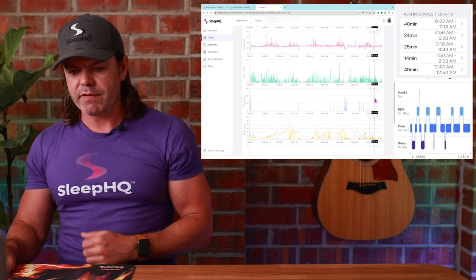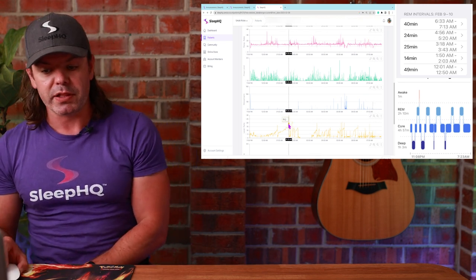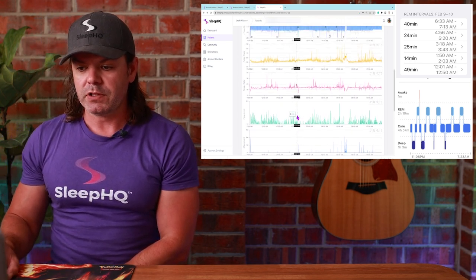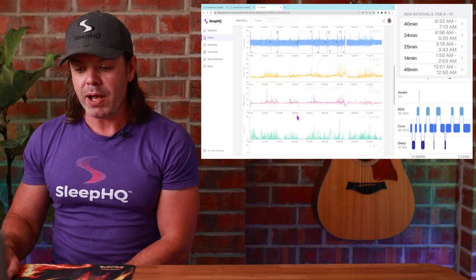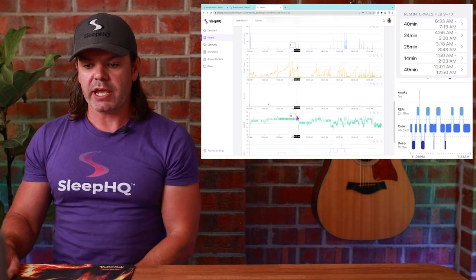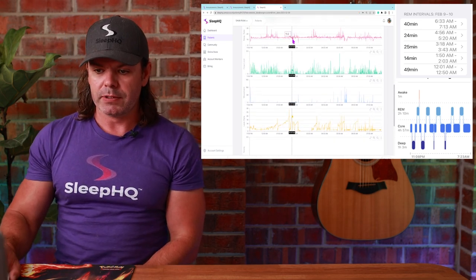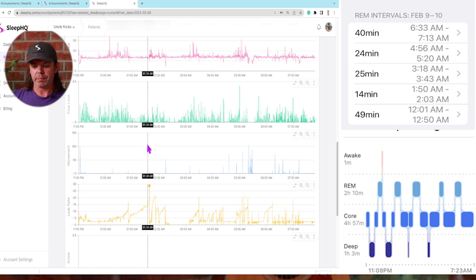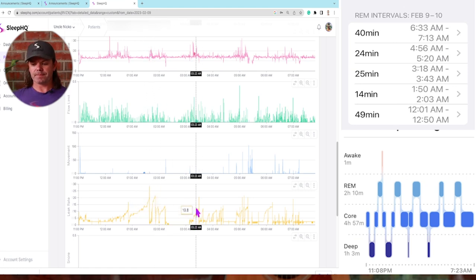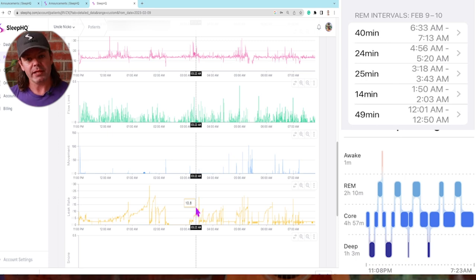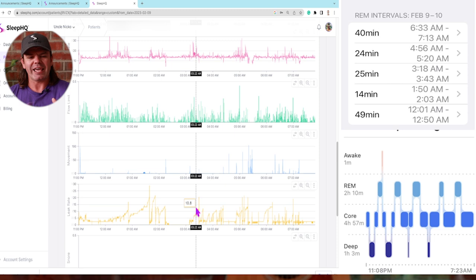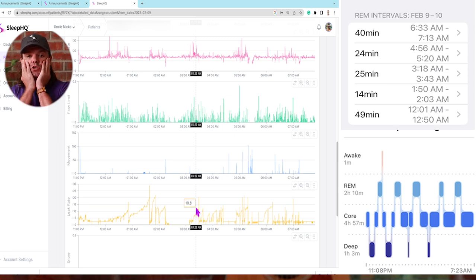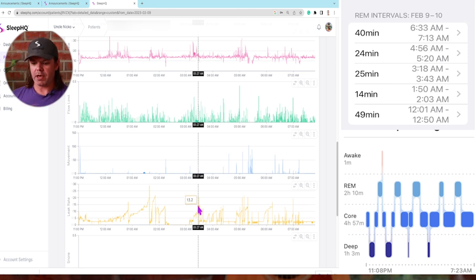Oh yeah, let's have a look at this. So I've got the leak rates here as well, and this is really interesting. So Phil is using a nasal pillow mask. Check out the leak rates as well that line up with these REM periods. See these big increases in leak? Now this is mouth leak. And why is he having mouth leak? The pressure's increasing, but the muscle tone, the atonia. He's losing all that muscle tone. Everything's relaxing, his muscles. So his jaw opens up, increasing pressure, air shoots out his mouth.